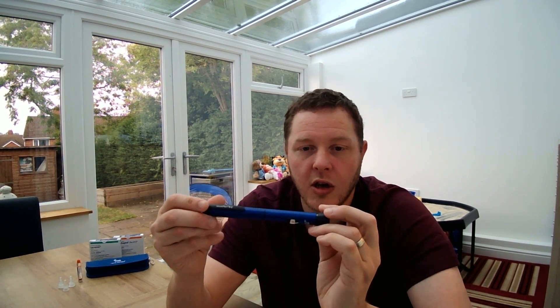Hey guys, Tom here. In this video I'm going to show you a little bit about my insulin smart pens. I've got the NovoPen Echo Plus, which I use for my quick-acting insulin, Novorapid. I'm also going to be talking about the NovoPen 6, which I use Levemir for my long-acting. You can also use Tresiba and Fiasp with these pens.